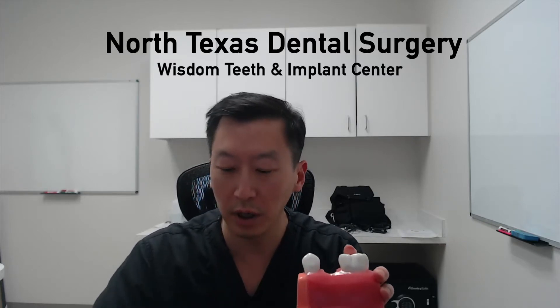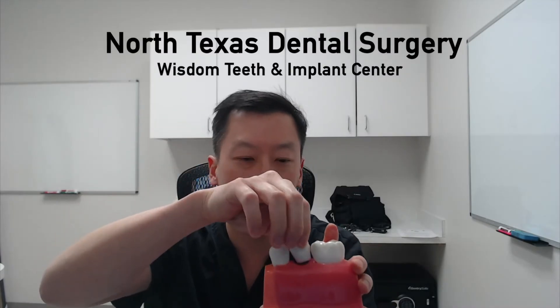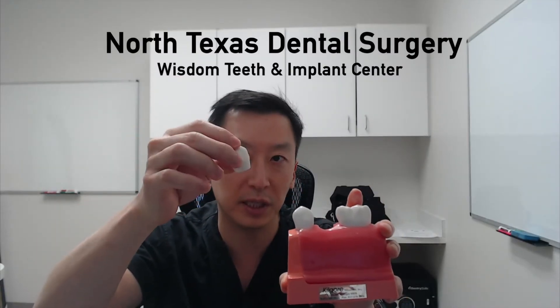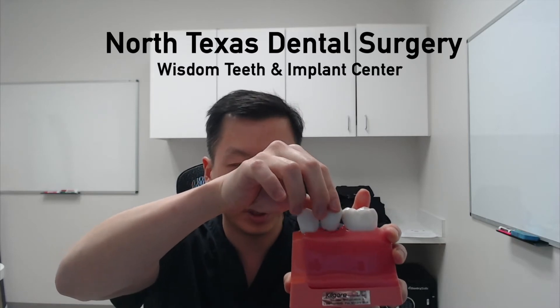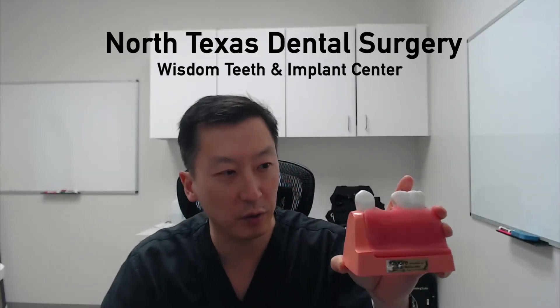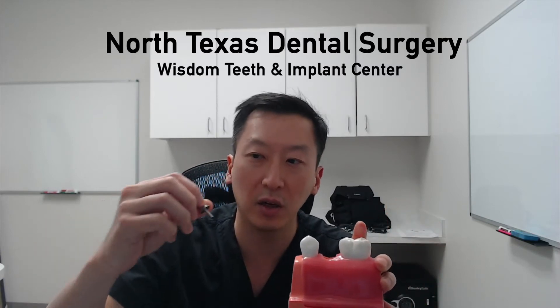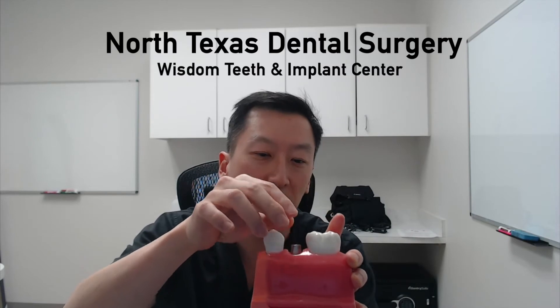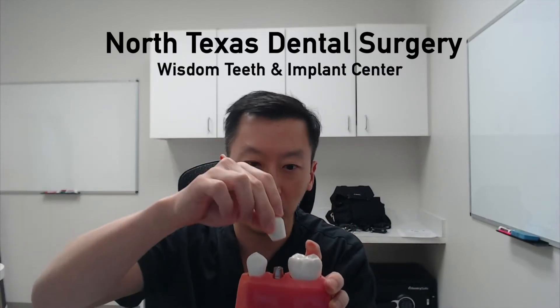A crown is basically a tooth replica — it is a prosthesis, a prosthetic that we place on top of the implant. Obviously there's nothing poking out through the dental implant, so there has to be a piece called an abutment. That is the interface that goes from the dental implant to the crown.